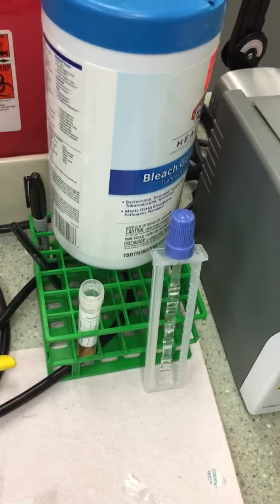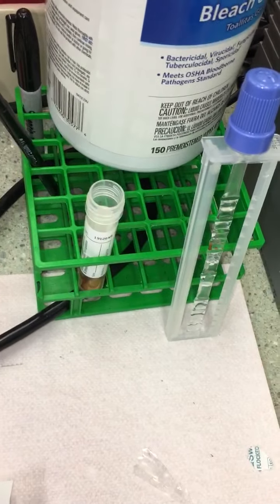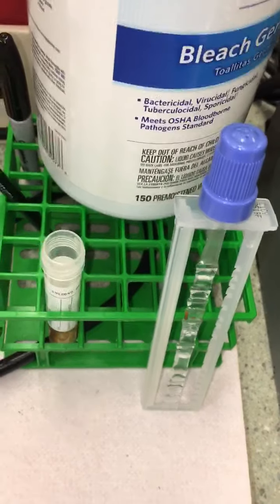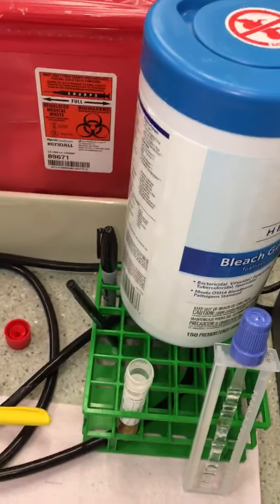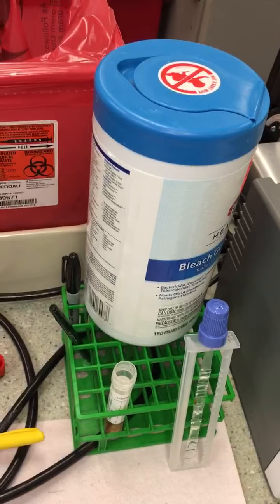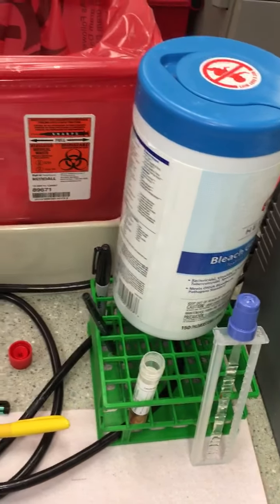Now, obviously, I said in the previous video that molecular testing for viral analysis is done underneath the hood. This patient is negative. There's no patient sample involved in this transport media that I've inoculated, so I'm not at risk of getting any kind of contaminant of viral infection. So that's why I'm not underneath the hood. But you should be underneath the hood for testing viral methods, especially molecular, which has the possibility of respiratory aspirates and droplets getting into our mucous membranes and causing disease.